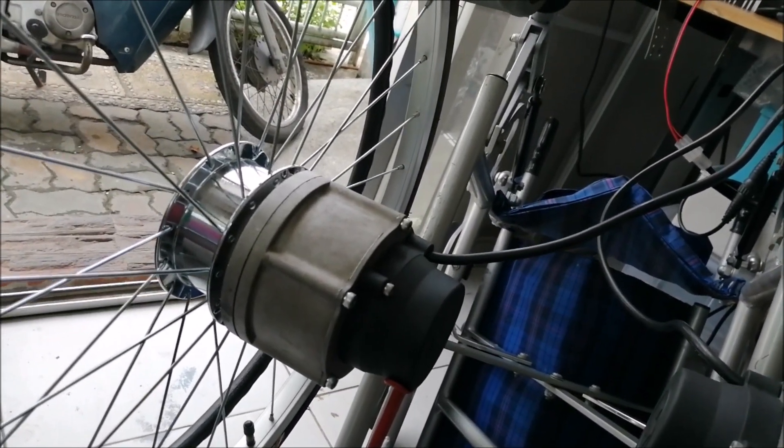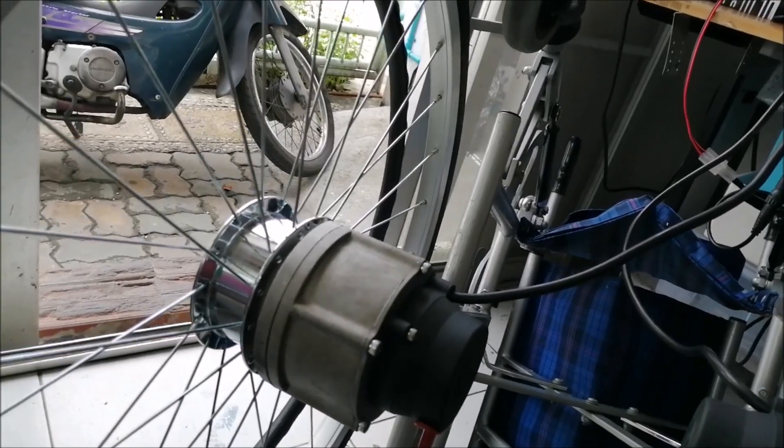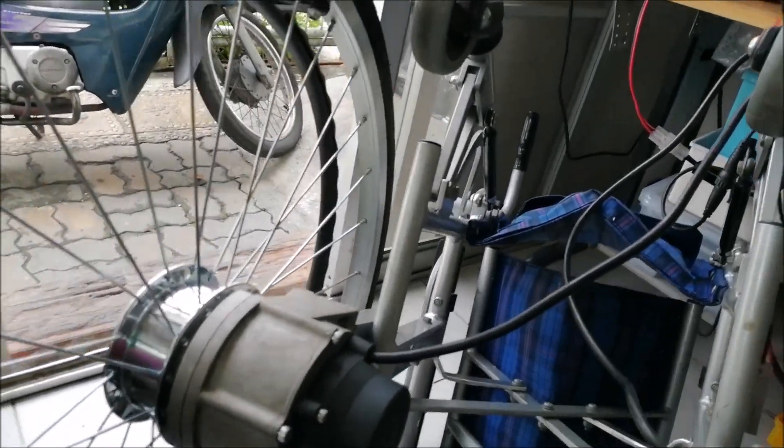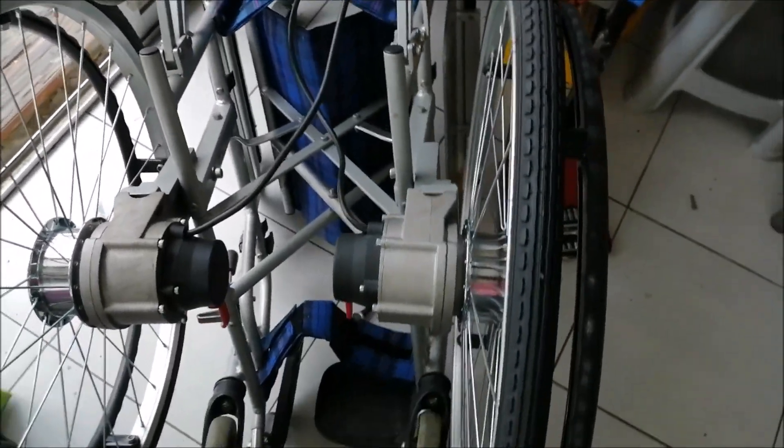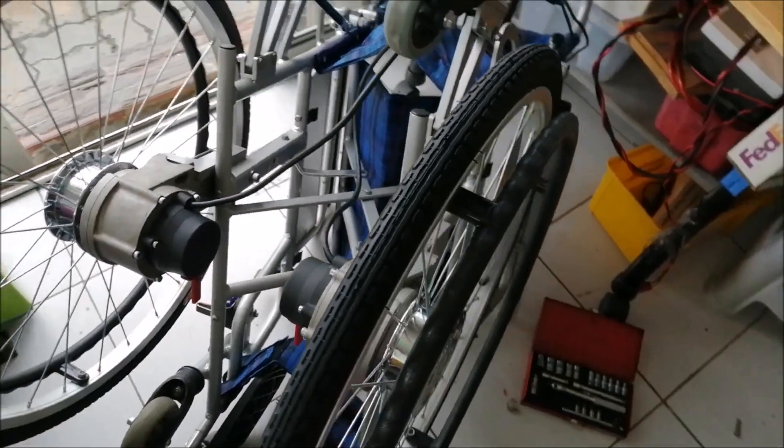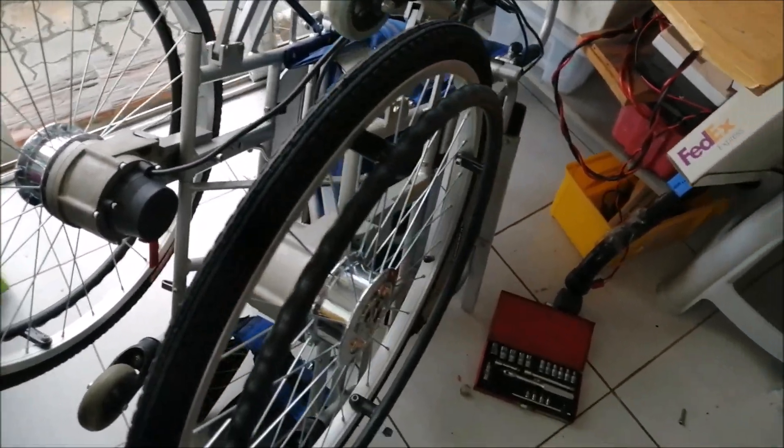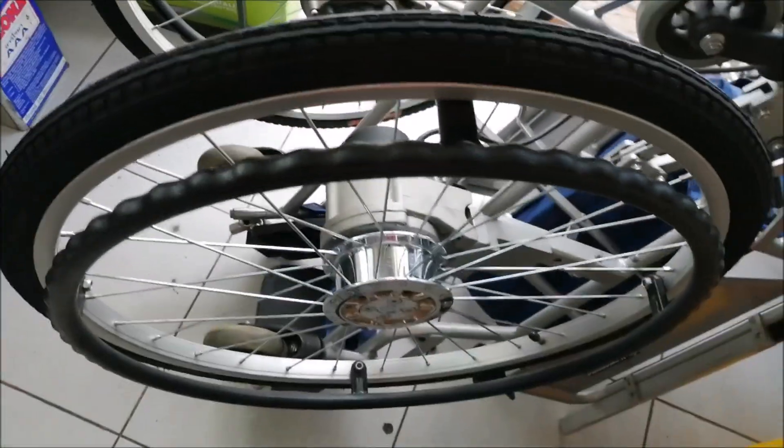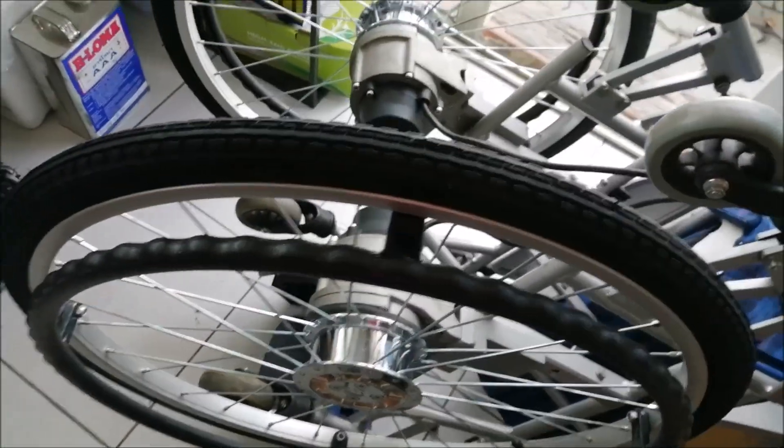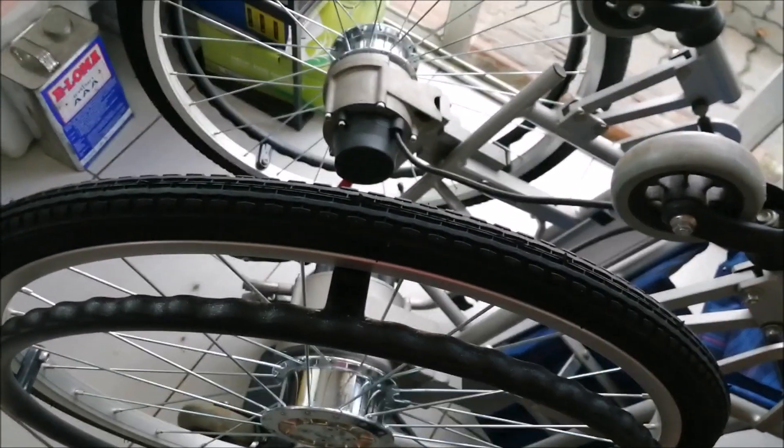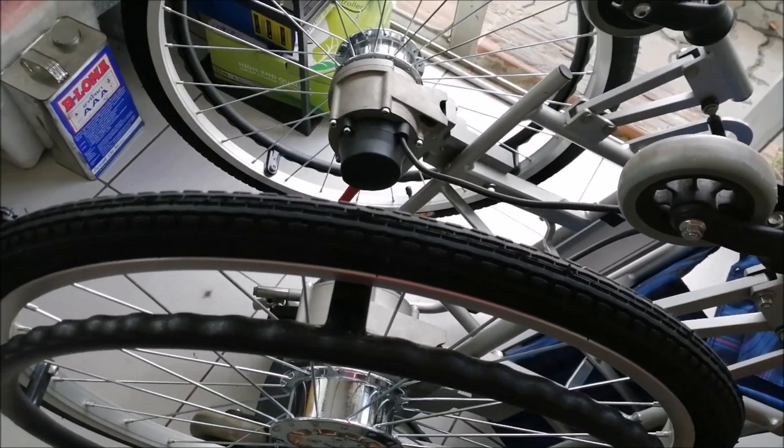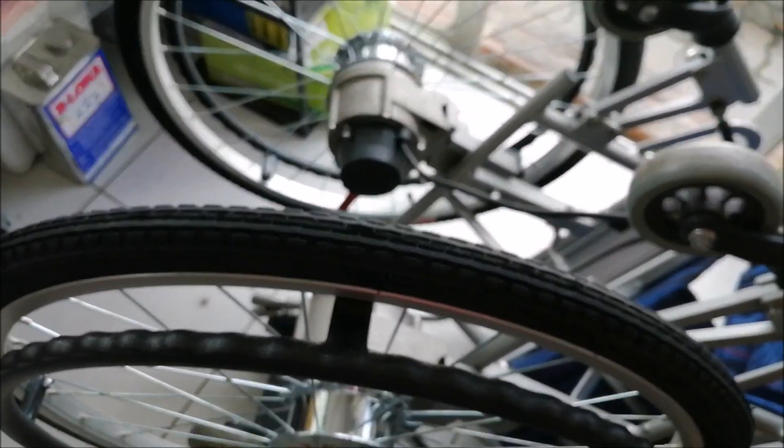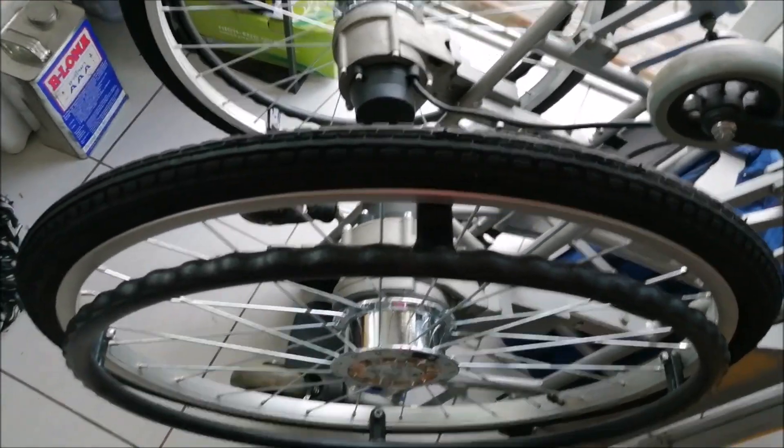This means for the smaller wheel sizes, the wheelchair can be pushed by hand easily. And if using a bigger wheel size, as here with a hand railing, it can be operated independently by the user of the chair.